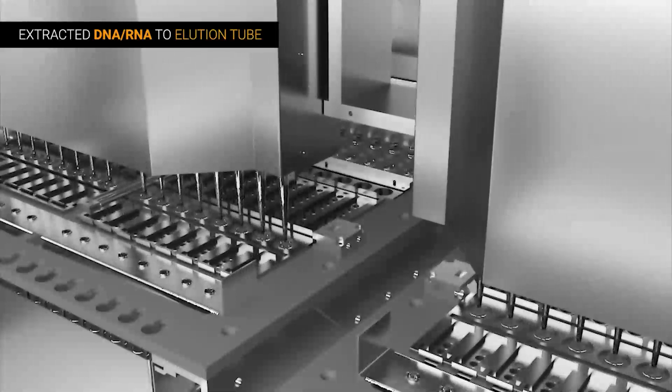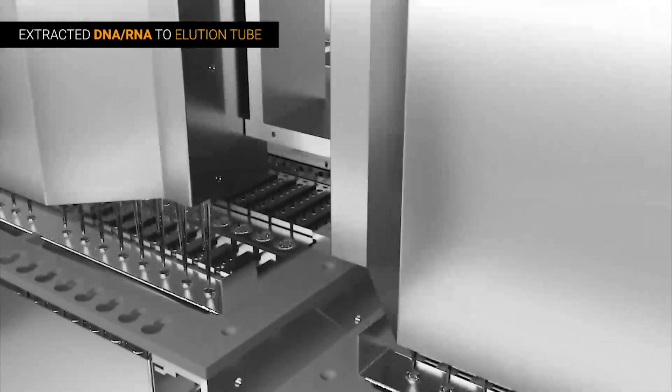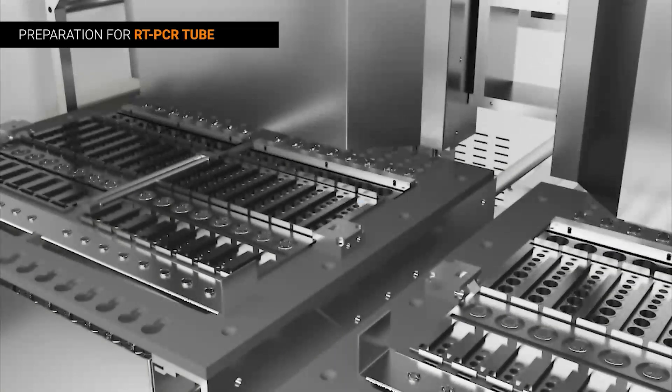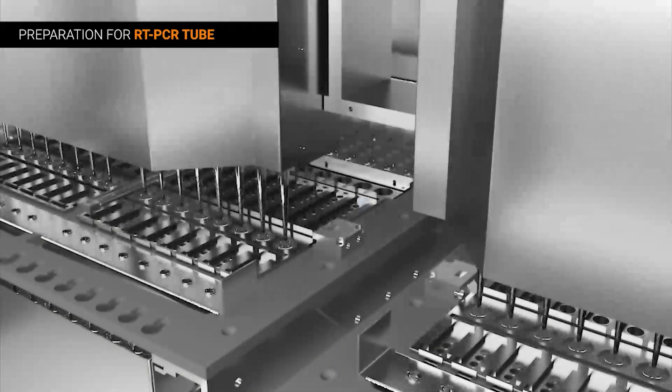Once the DNA or RNA is obtained from the virus, it is mixed with the pre-filled reagents required for analysis, and finally dispensed into another reaction tube for further results.